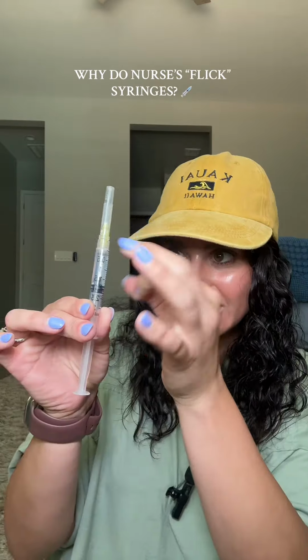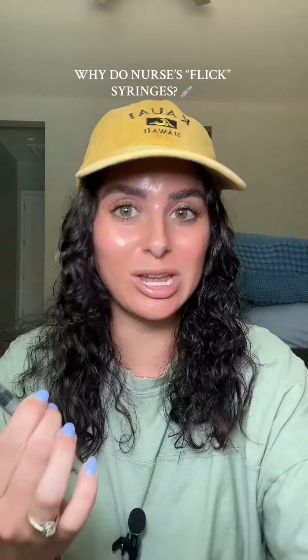Have you ever seen a nurse flick a syringe before they give a patient a medication? If you're not familiar with the healthcare world, you're probably like, why are they doing that? Let me tell you why.